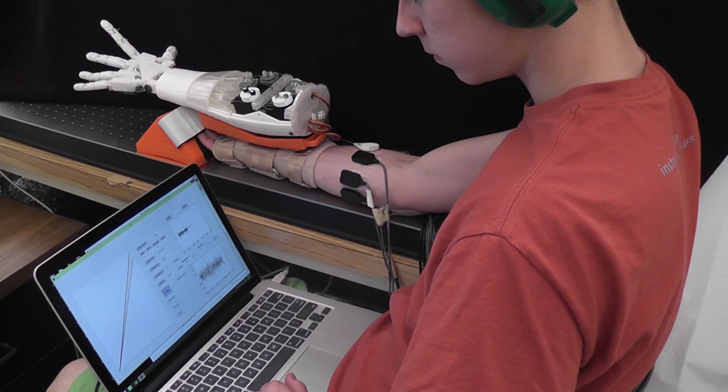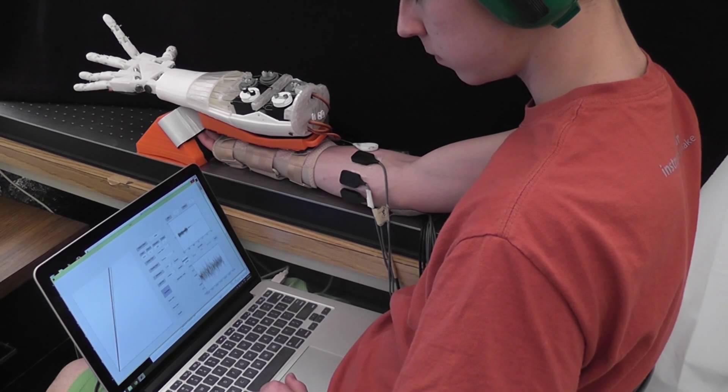In training, his goal is to follow a target virtual finger, shown in red, by controlling the virtual finger, shown in blue.